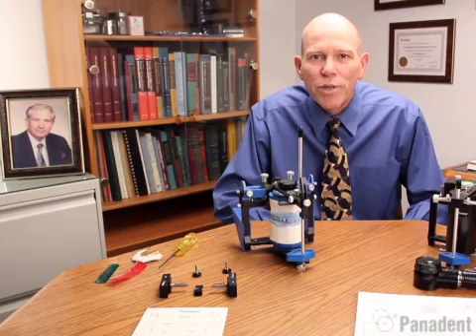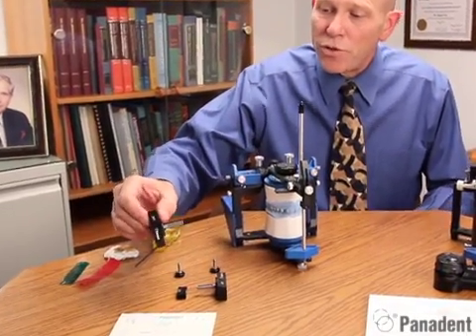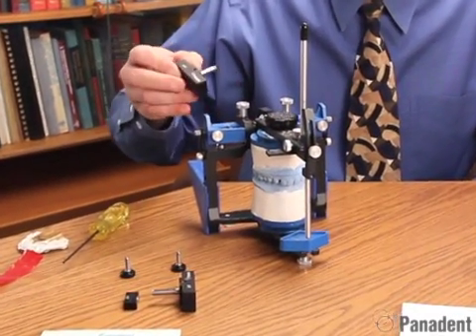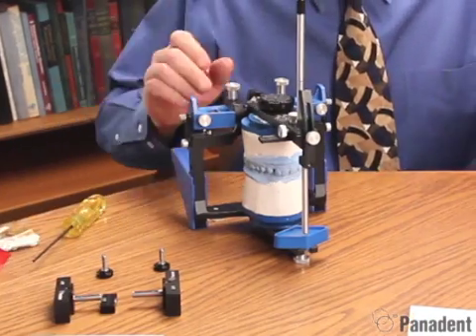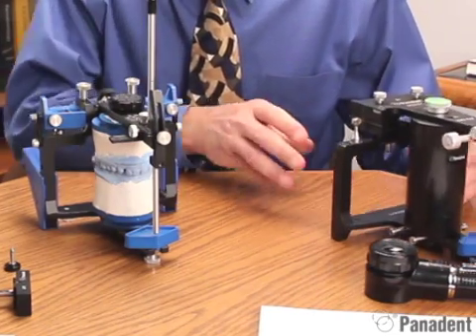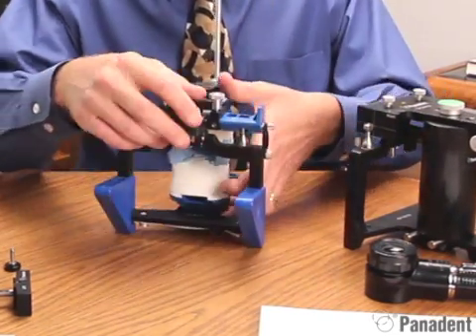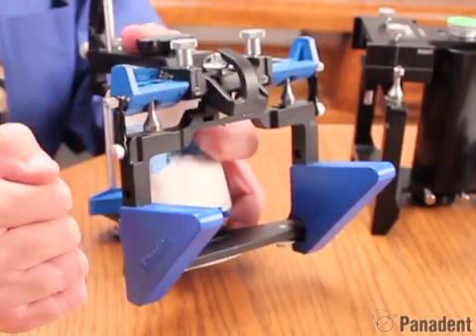Hello and welcome to my demonstration of the API CPI system. The API system uses graph supports in conjunction with the articulator by removing the motion analogs and adding the graph supports. The CPI system is a dedicated articulator with built-in graph supports. The main difference is that with the API system, we will be utilizing a centric pin to index our horizontal table.